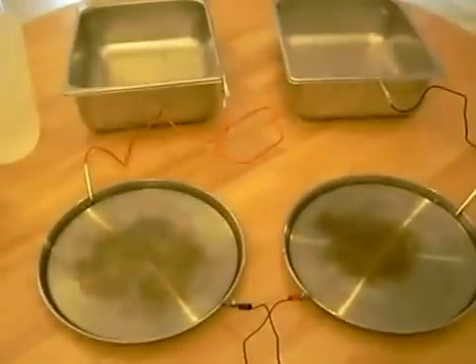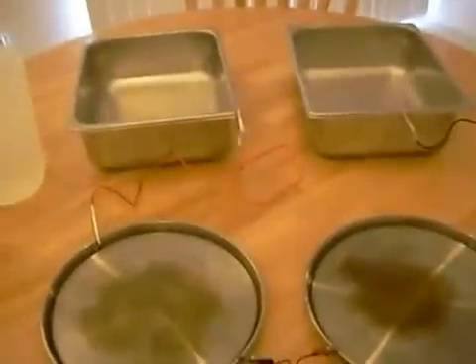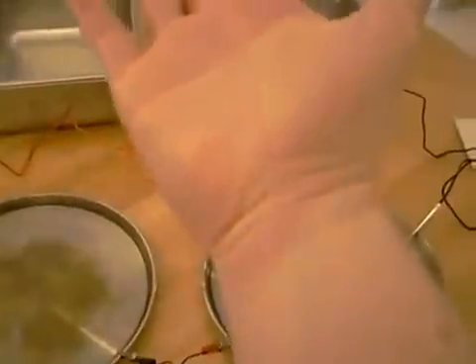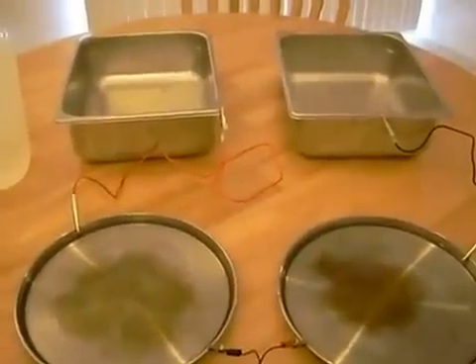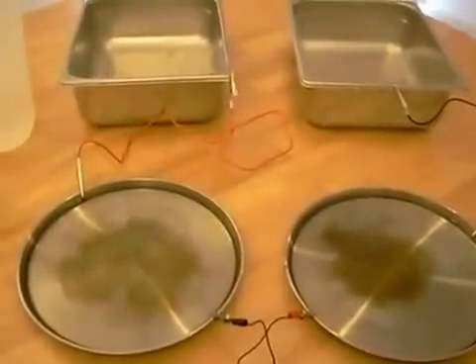You can do your hands and feet simultaneously, and I've found this to be a little more effective — it also saves time. For about 20 to 25 minutes every other day, this total setup will probably run you around $20 to $30. I found it to be a very effective way to cure my sweaty hands. It does leave a little redness, but that usually goes away in a couple of hours. As you can see, my hands are perfectly dry. I hope you can use this information — you know how detrimental sweaty hands can be to your social life. Save money and cure yourself.